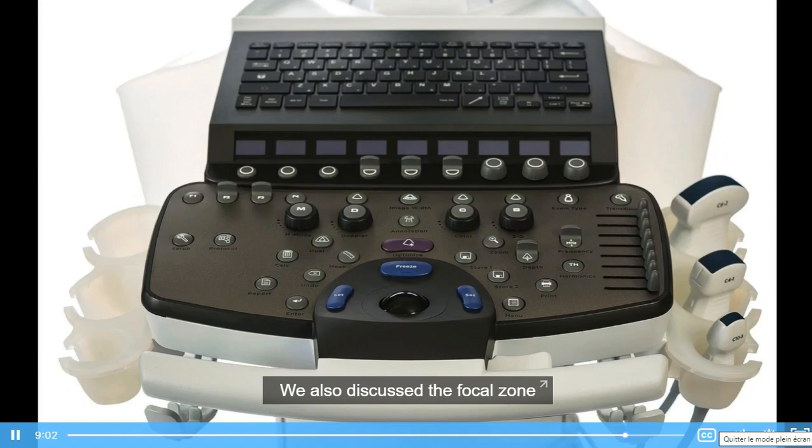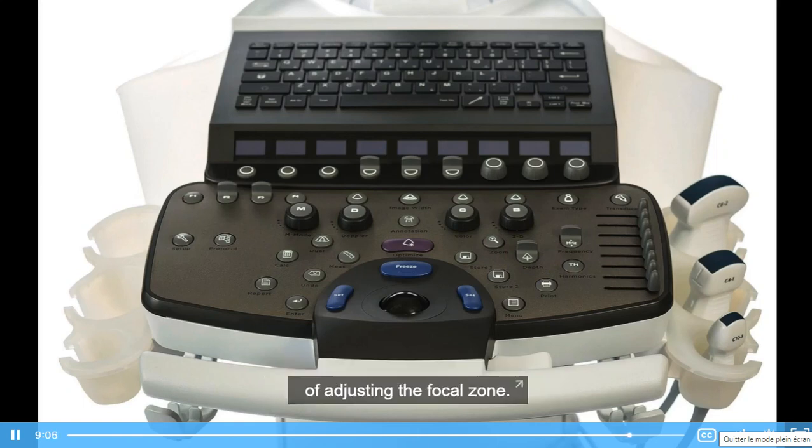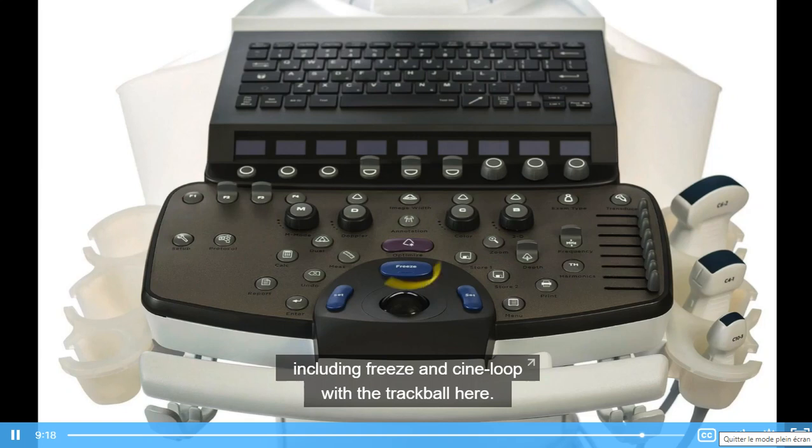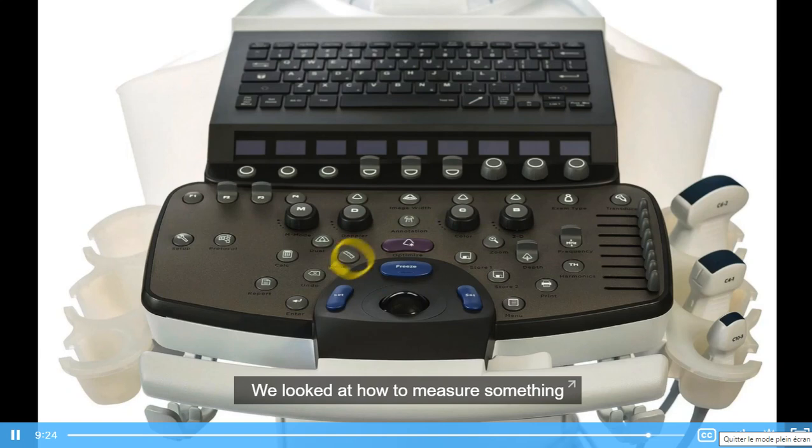We also discussed the focal zone, which this machine doesn't give you the option of adjusting. We covered how to change the frequency. We then discussed zoom, which here is the zoom button. After that, we discussed several things, including freeze and cine loop with the trackball here. We looked at how to measure something and how to do calculations.